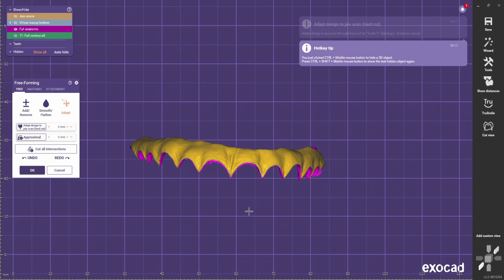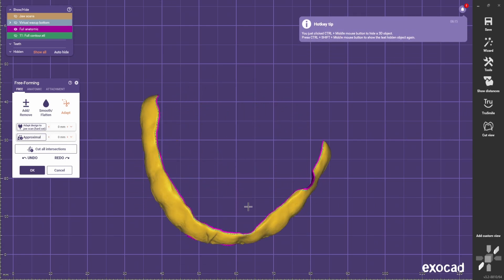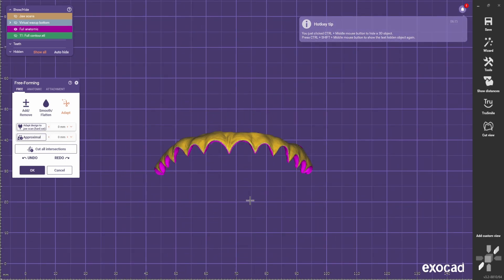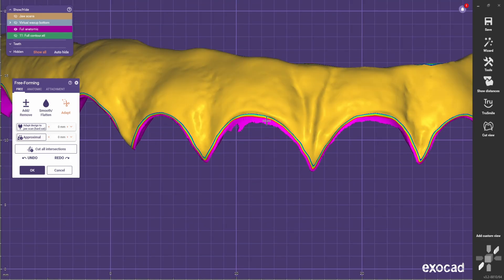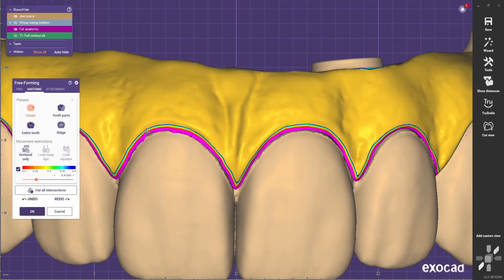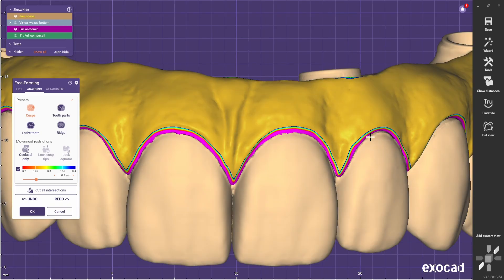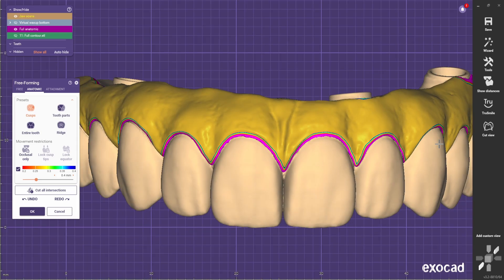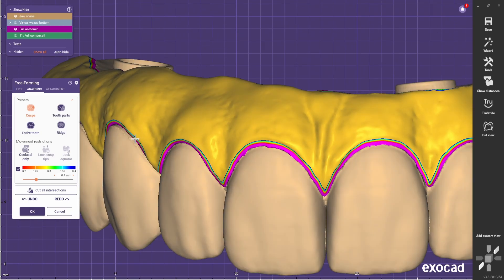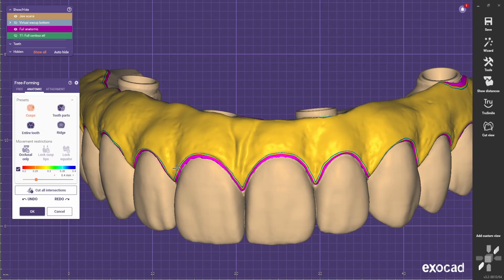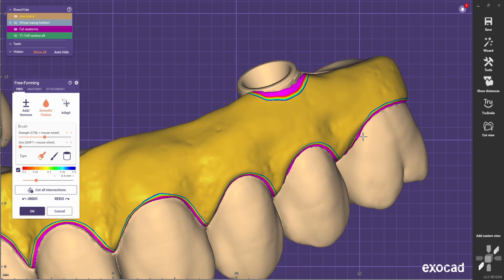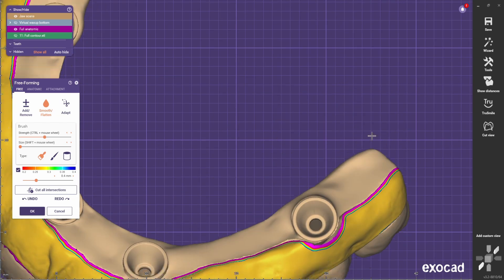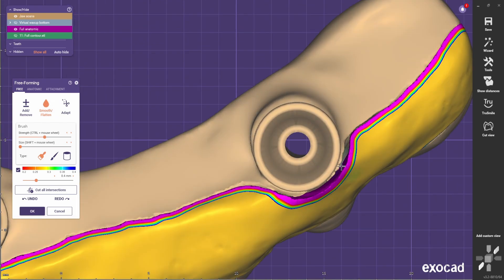And as you can see, this is what remains. And you see that you have a bit of tooth left over, so you can just come here and smooth it out. You can pull around, play around, just to cover this transition. So smooth any extra bits and it should be done.